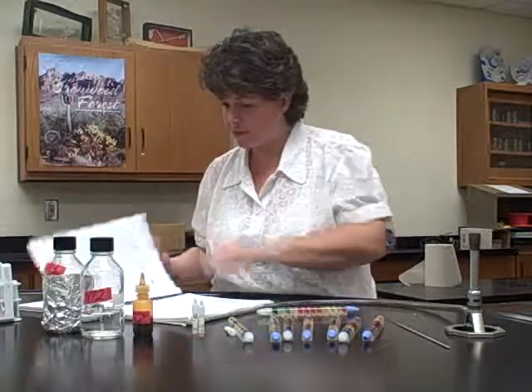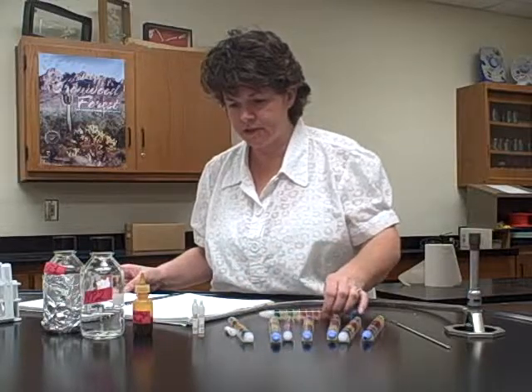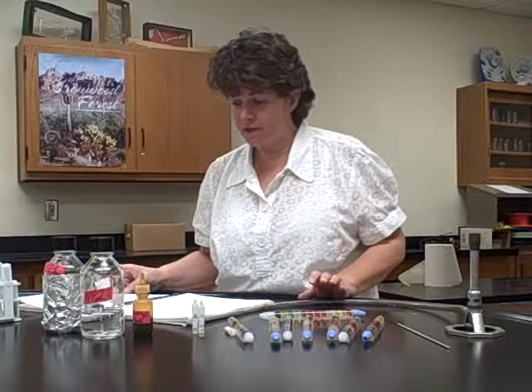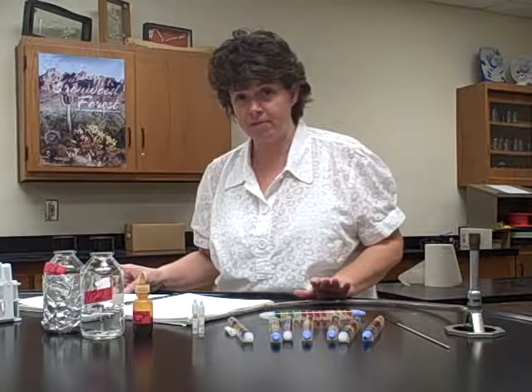So for that one, that's all you do. Remember, we did not do the other test, the API 20E, and so that's the last of the rapid ID method.